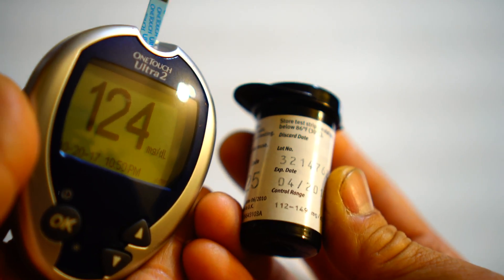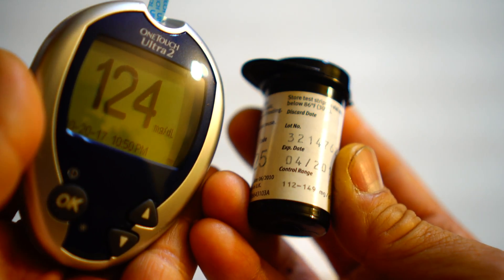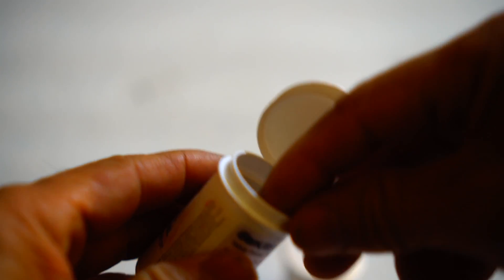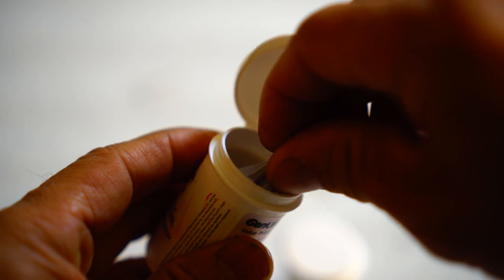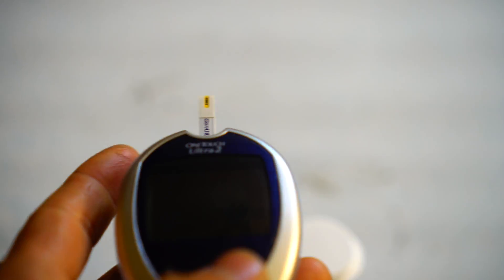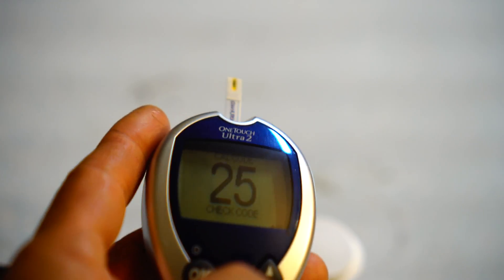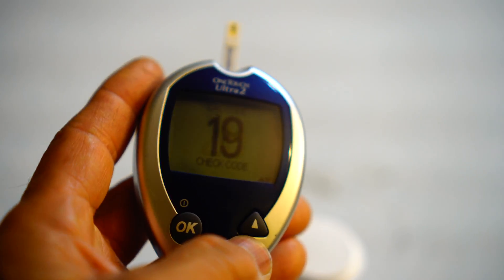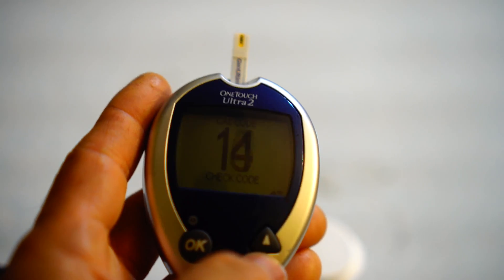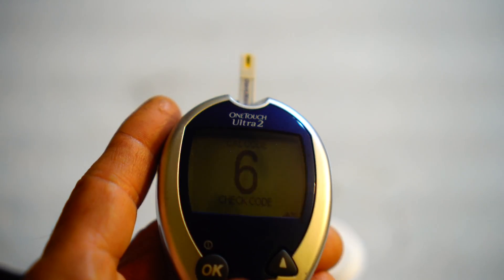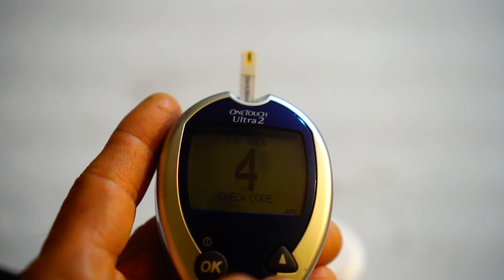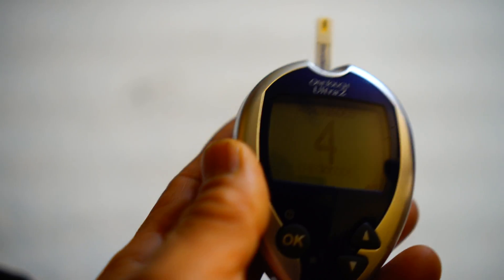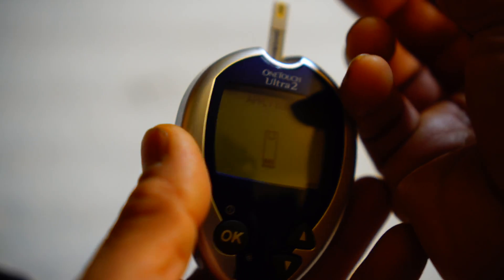Let me take that out. First up is this batch, lot 70160A. This one's code is number 4, not 25 like the other. And then I'm going to put the solution on.